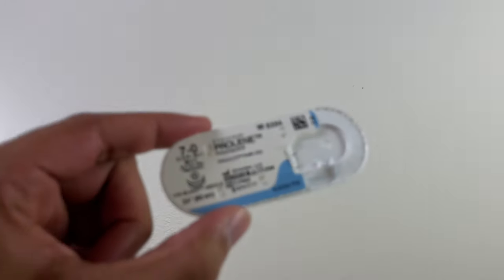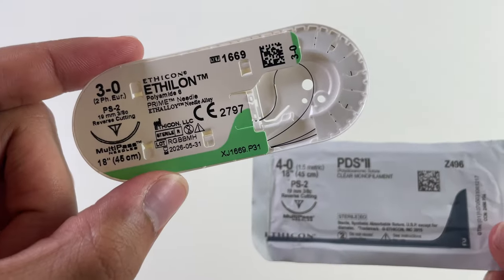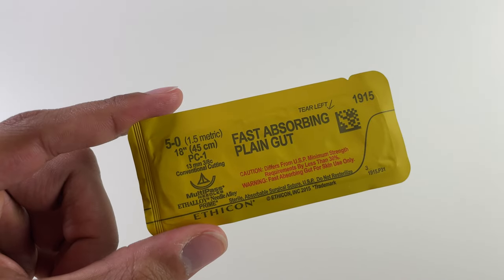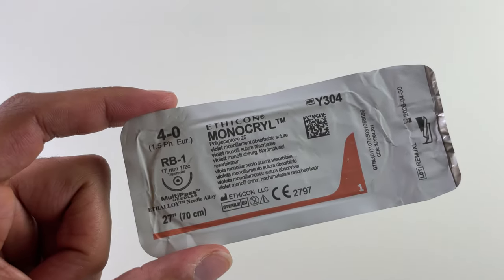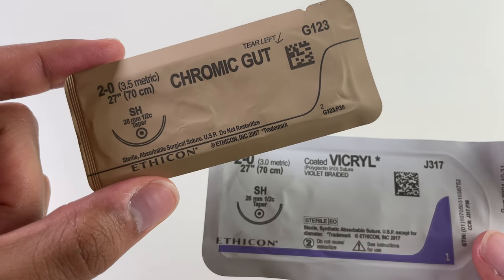Finally, the needle shape itself can have a huge impact on cosmesis and the efficiency of wound closure. The suture code generally reveals its function: BV sutures are for suturing blood vessels; P or PS sutures are for plastic surgery; PC stands for precision cosmetic; RB for renal artery bypass; and TF sutures are used in repair of Tetralogy of Fallot. Sometimes the name is more practical — CT stands for circle taper, and SH stands for small half circle.